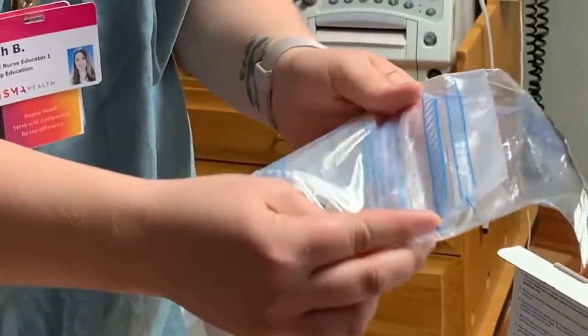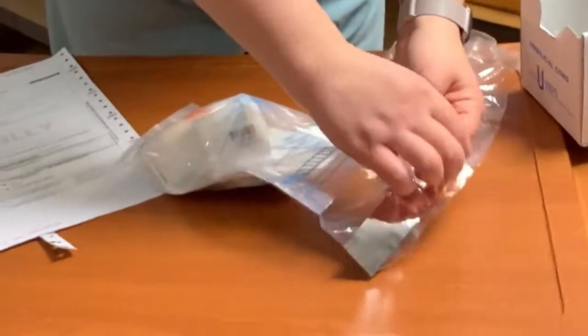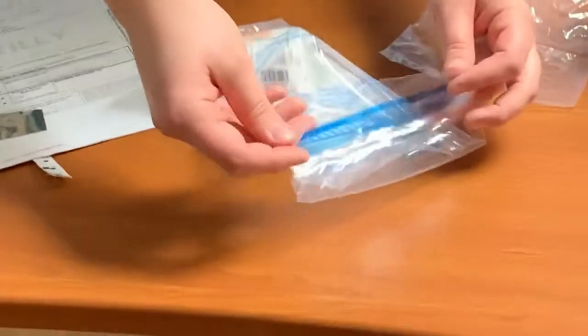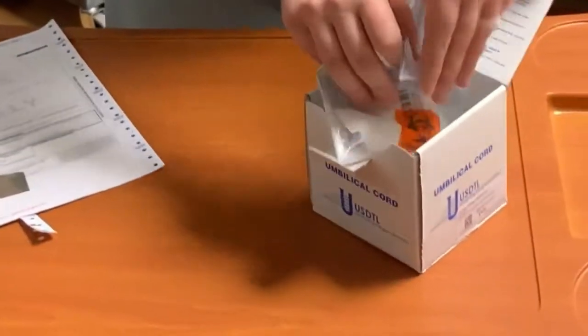Step 3, remove release liner from flap. And step 4, fold blue adhesive flap to cover blue crosshatch slit opening. So this removes and you have sticky, and the blue little sticky goes to the blue crosshatch. Like so. You're sealed and beautiful. This goes inside of the box.